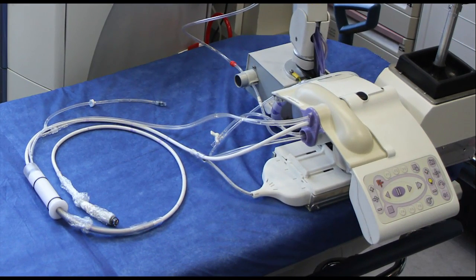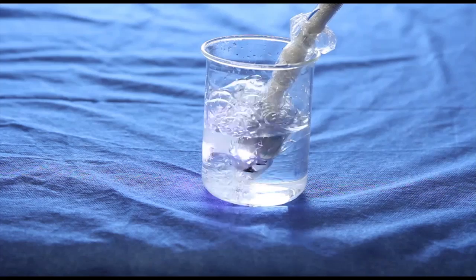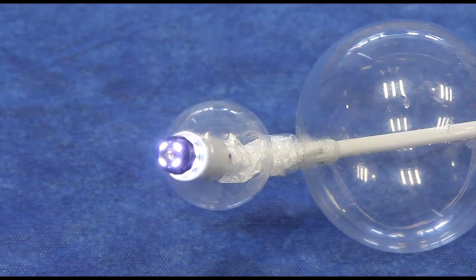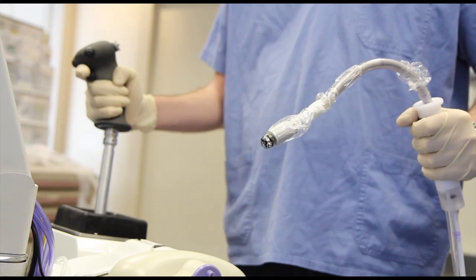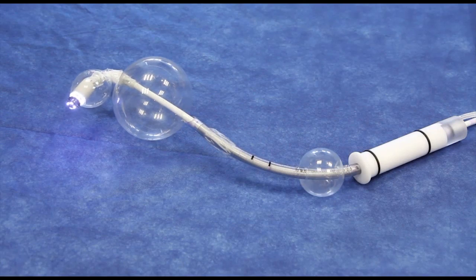The imaging capsule and balloons are connected to the workstation via an ultra-flexible multi-luminal cable that supplies the scanner with gas, water, suction, and a low voltage current. Using a joystick, the physician has complete control over the disposable scanner orientation for navigation and visualization.